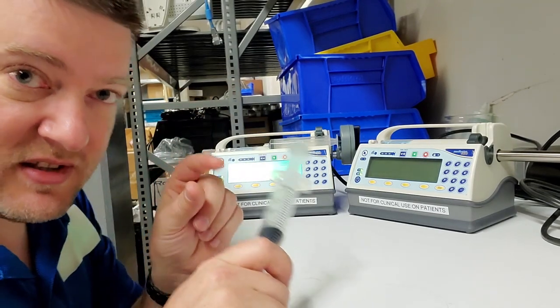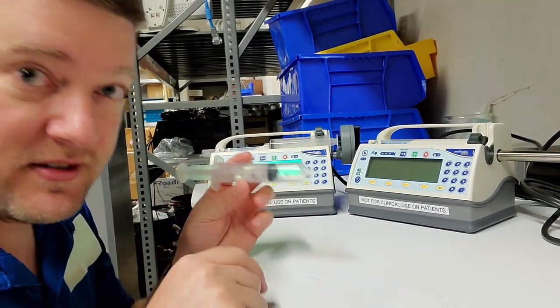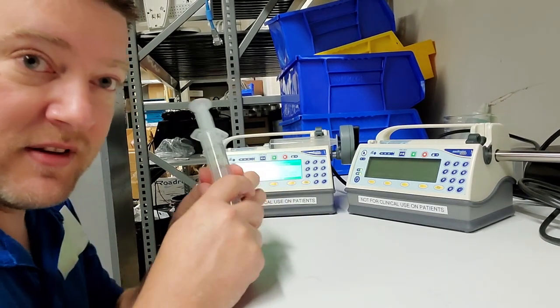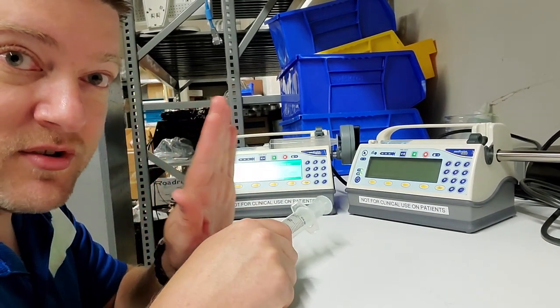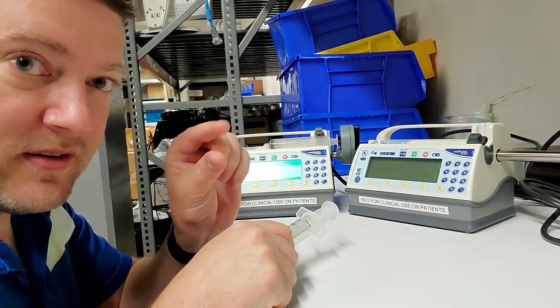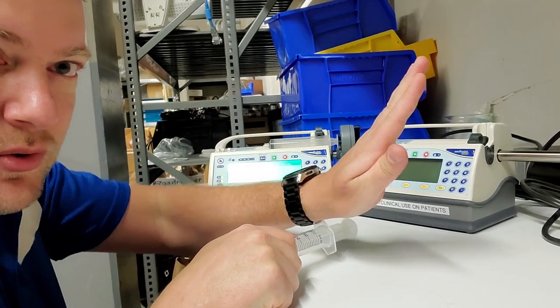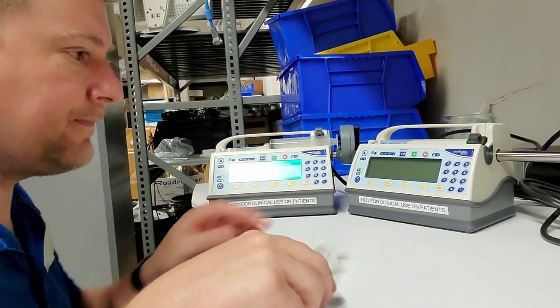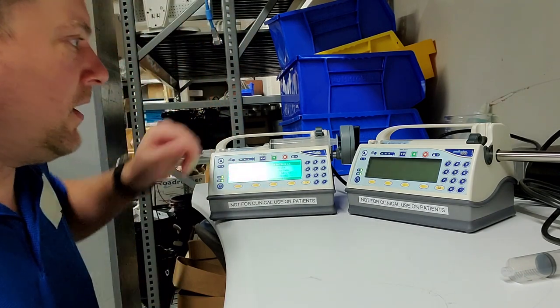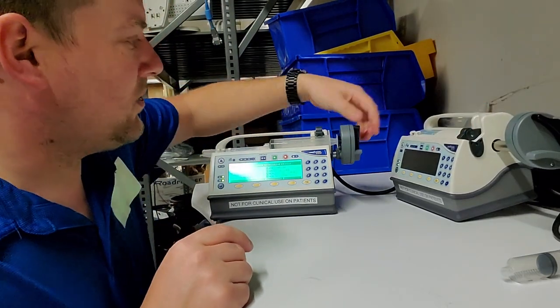If you have a little 10cc syringe versus, say, a 60cc syringe, it will know to push the 60cc more slowly than the 10cc. The 10cc probably will push a bit quicker. These syringe pumps have a few other extra features.